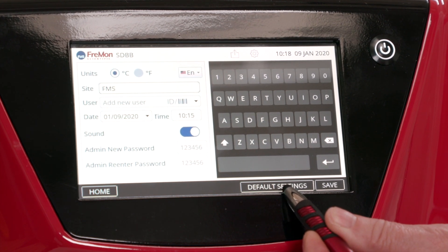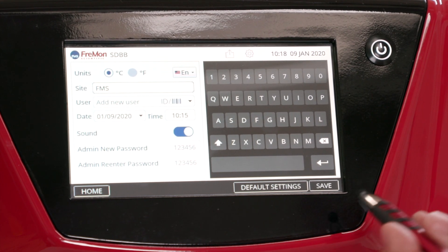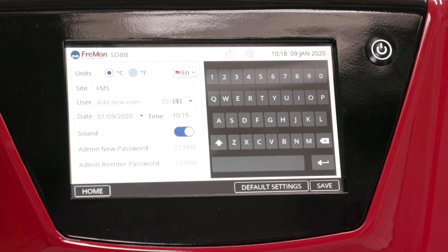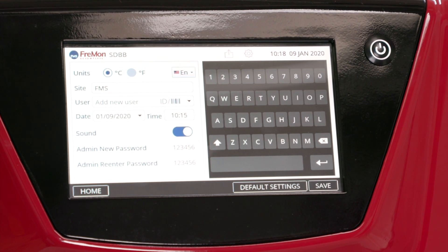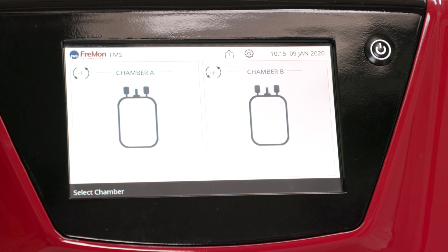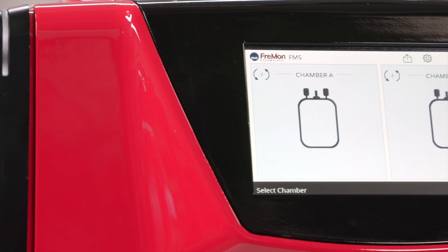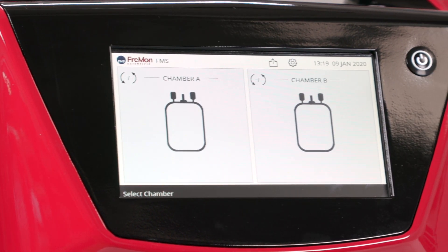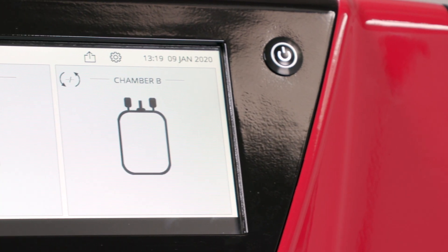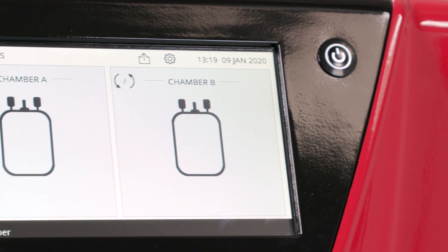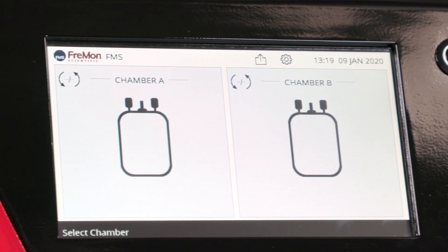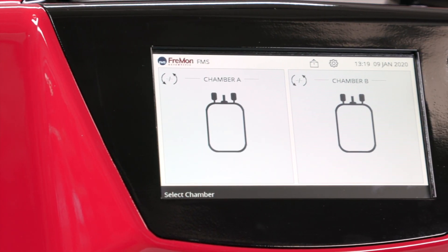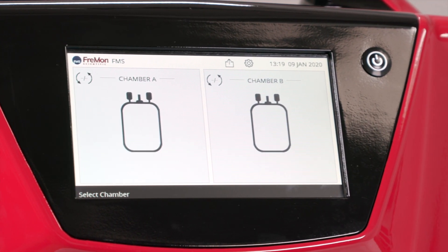Now that you've entered in users and set your preferences, review the unit to make sure it's ready for you to use. The main screen shows the site name, the export data tool, the settings menu, the date and time, number of zip sleeve uses, the action buttons, and instructions with a cancel feature.